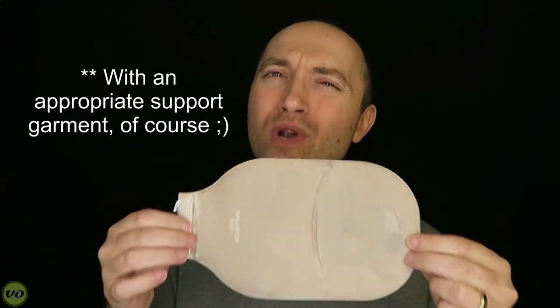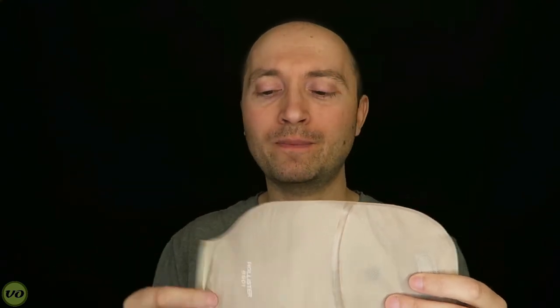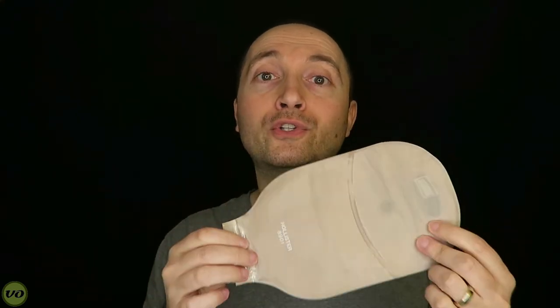I have been wearing and am currently wearing this appliance horizontally. It works pretty well, though I find one-piece systems a little awkward when worn sideways. This particular appliance doesn't have a long enough outlet to easily aim it down, so there's a little more fiddling. With a Hollister two-piece or most other two-piece systems I can angle the outlet down, which you can't do with this once it's in the horizontal position — that's just one of the cons of a one-piece system.